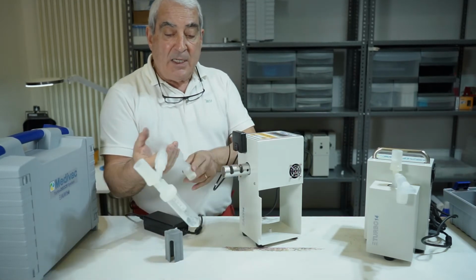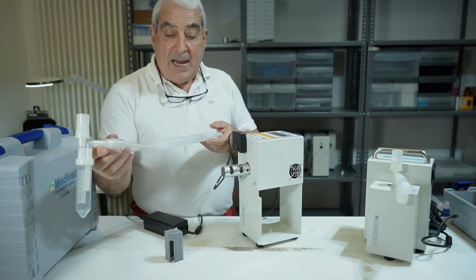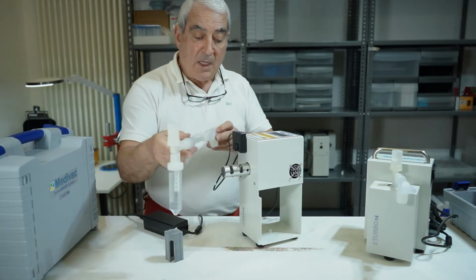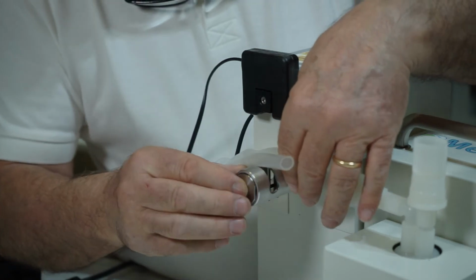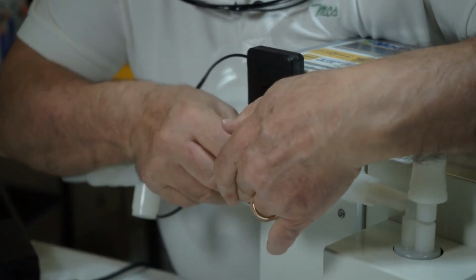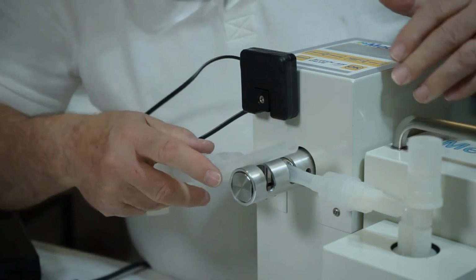Then the specific sampling circuit for the alveolar EBC collection is inserted, represented by this sample. Practically, the circuit positioning is done by pressing the plug at the actuator front. We can insert the collection pipe, releasing it. We can easily insert the discharge pipe. So at the beginning, the collection pipe must be closed and the discharge pipe open.